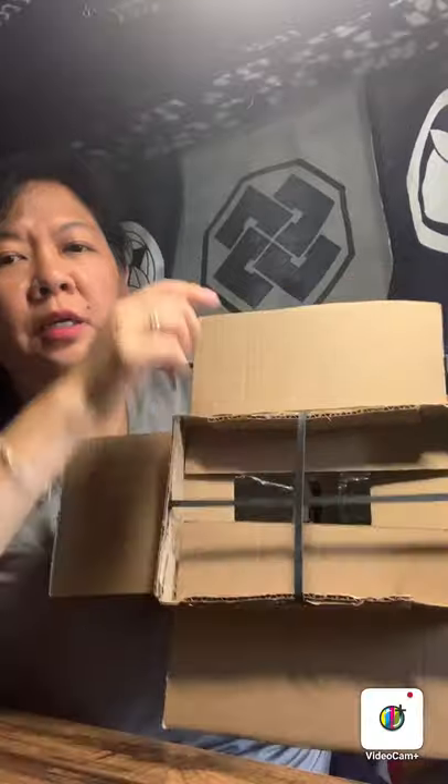It's basically the same core design. I made a few adjustments based on personal preference. I have sliding collimators that are integrated into the box. I made two parallel slits into the top inch of the box, and there is a perpendicular slit that's also parallel about a quarter of an inch down from the side slit. What you will see is collimators that actually overlap and close up in a fairly perfect square. When you actually collimate, they will force you to create four-sided collimation.